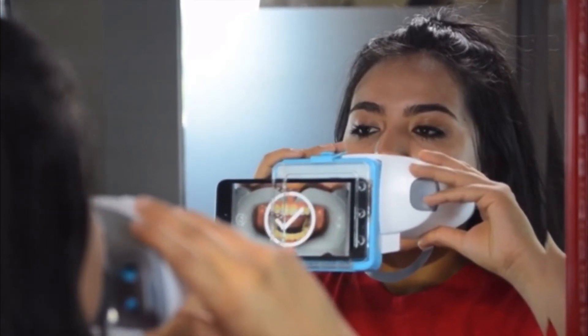We're done. You can now remove your cheek retractor. Now you try it. You can hit the blue scan button to take a test scan. If not, take your first official scan. Before you submit it, it'll allow you to check it and see if you like your scan. If not, it's okay — keep redoing it until you do.